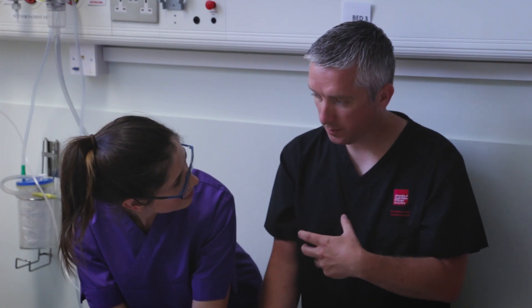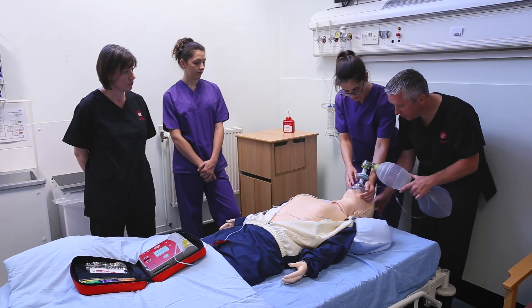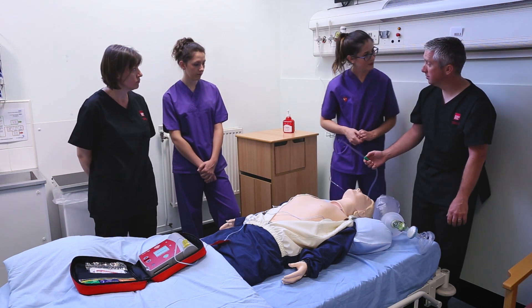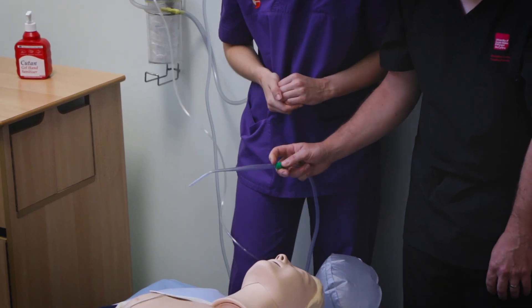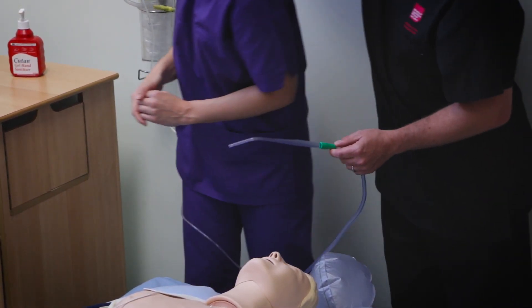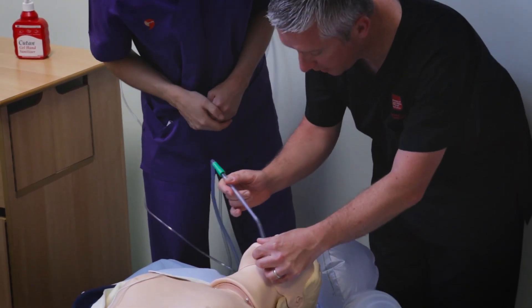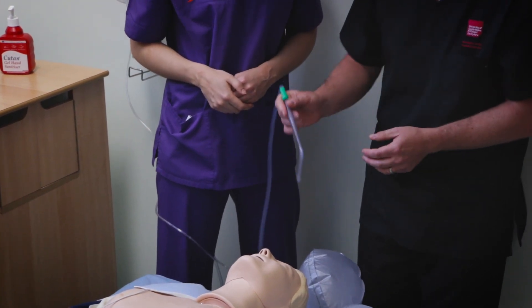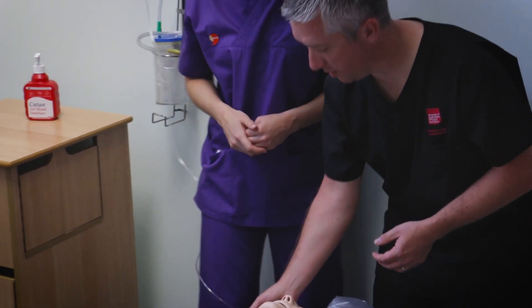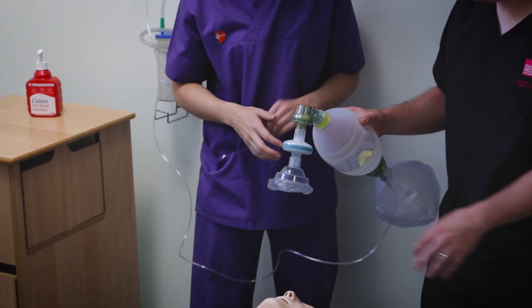What else can you gather in the airway? Secretions. So that's why we have this — a Yankauer with suction — which should always be at hand, available and working in clinical areas. When you do have a cardiac arrest, use this piece of equipment with suction. Check the airway and clear any secretions that you see — just clear where you can see, don't push it too far back, as you can cause trauma to the airway.